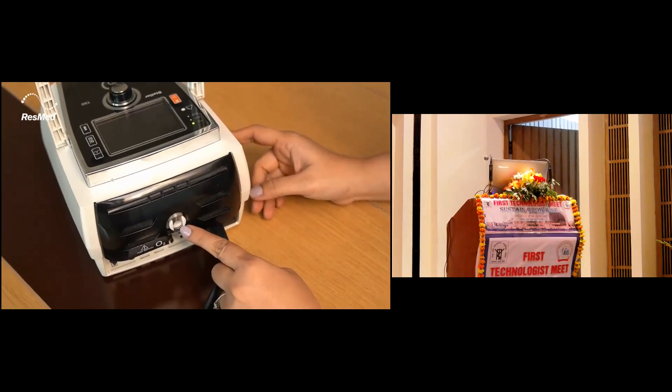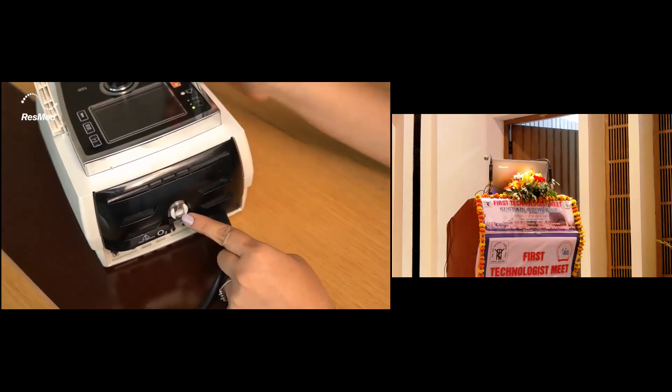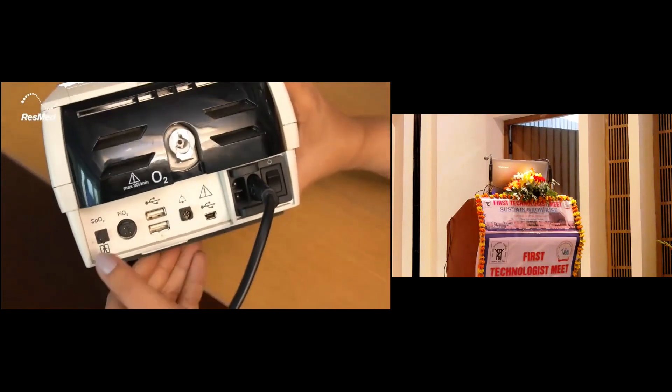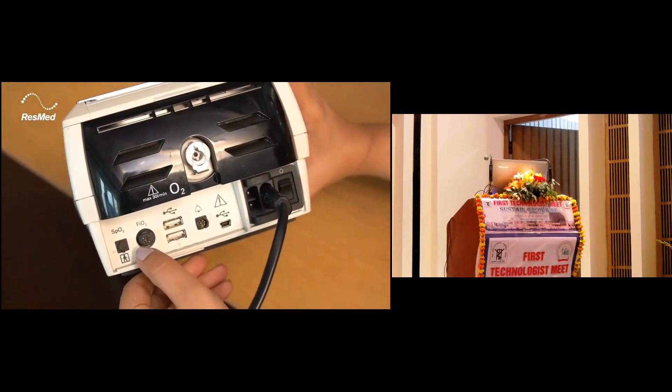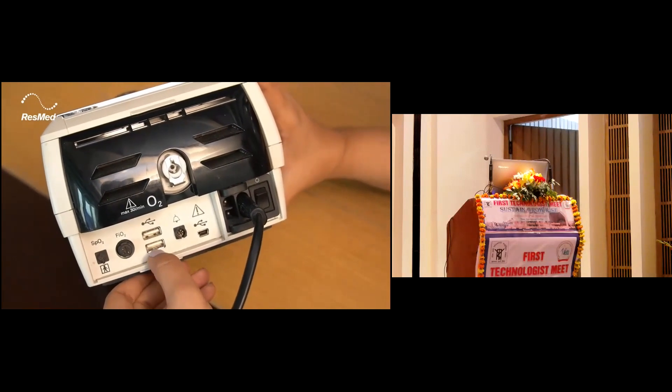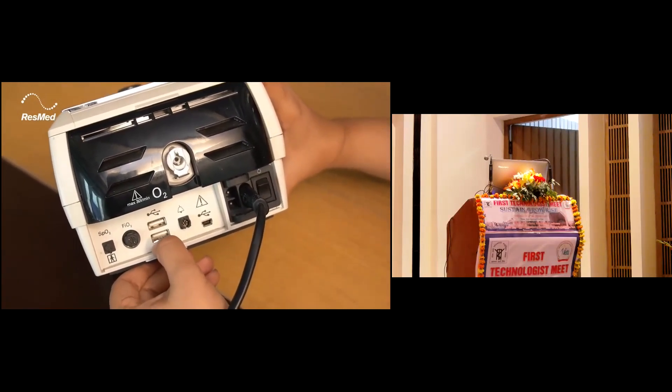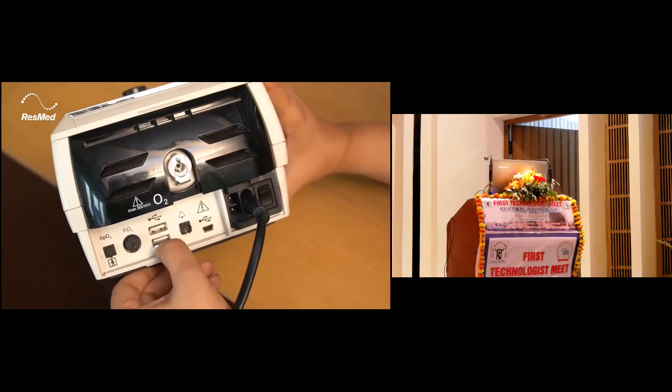We have the oxygen inlet over here, wherein 30 liters of oxygen can be given. At the back we have the SpO2 connection, external FiO2 connection, and USB connection. This is for service and to take data from Stellar or put data into Stellar.